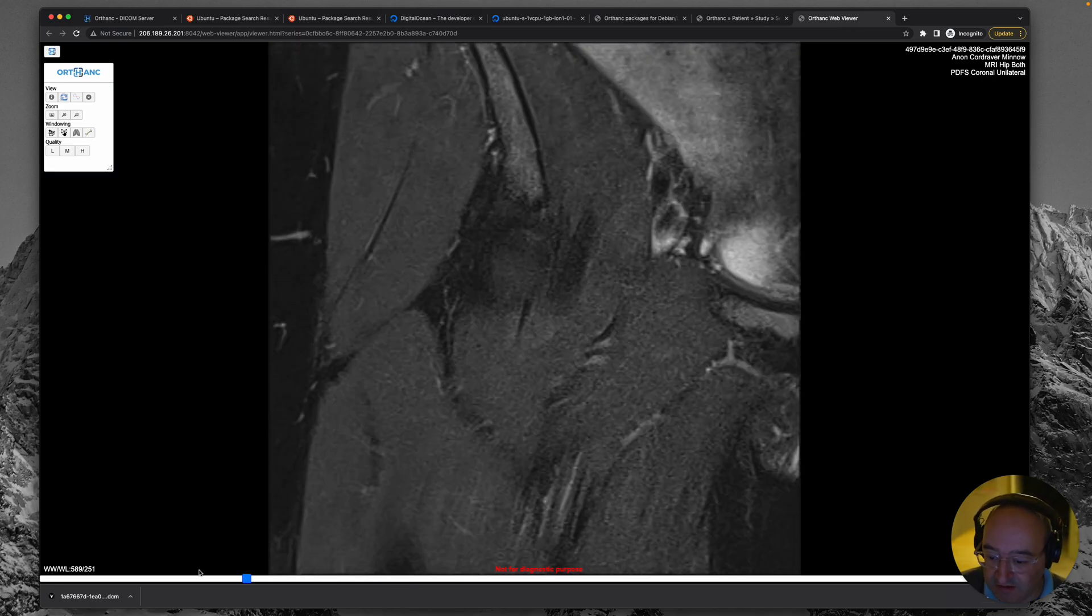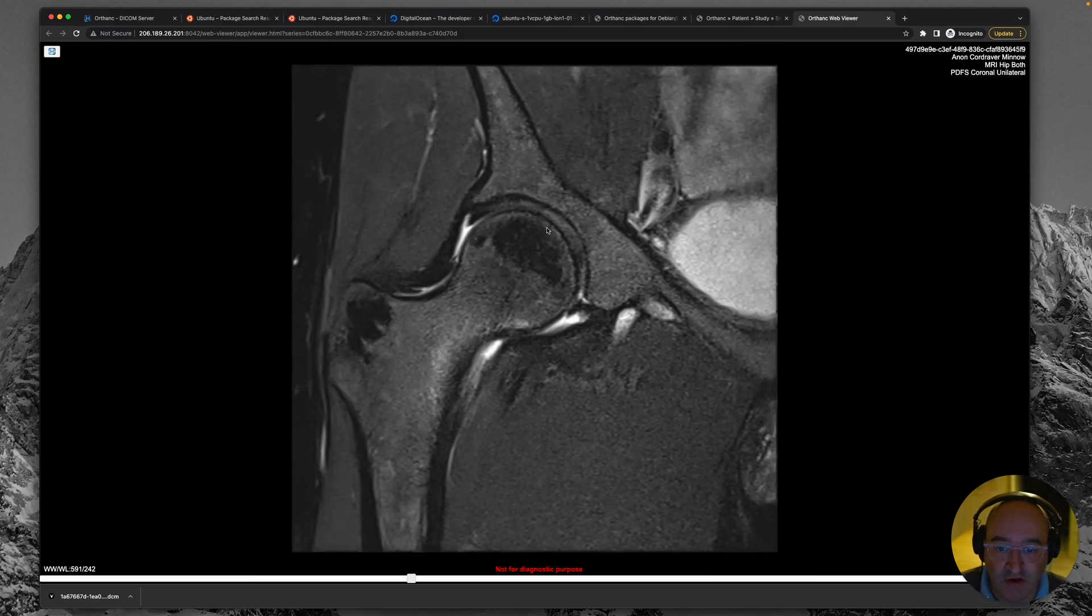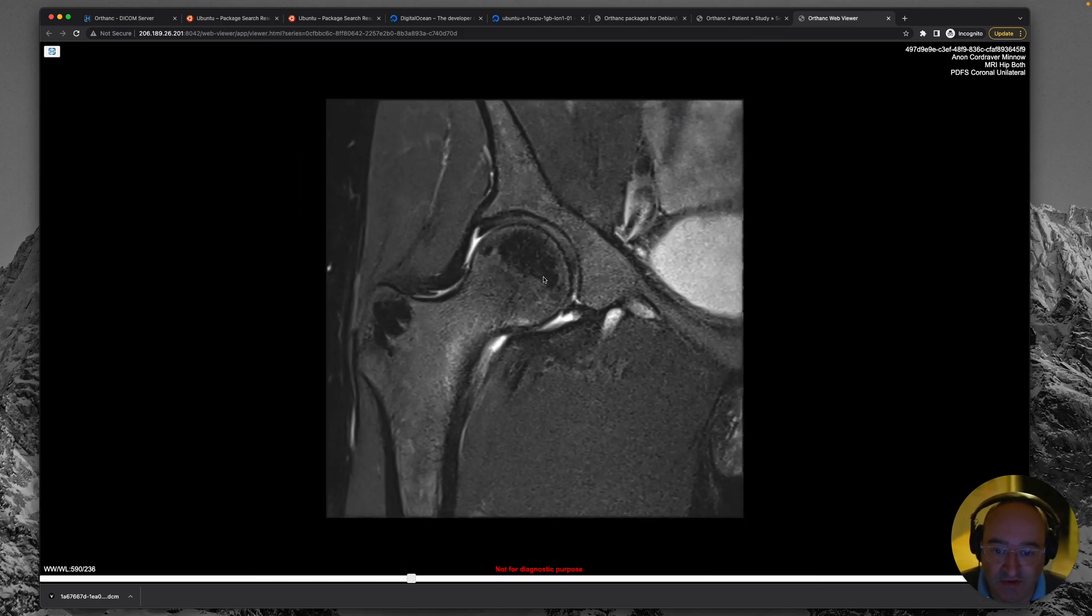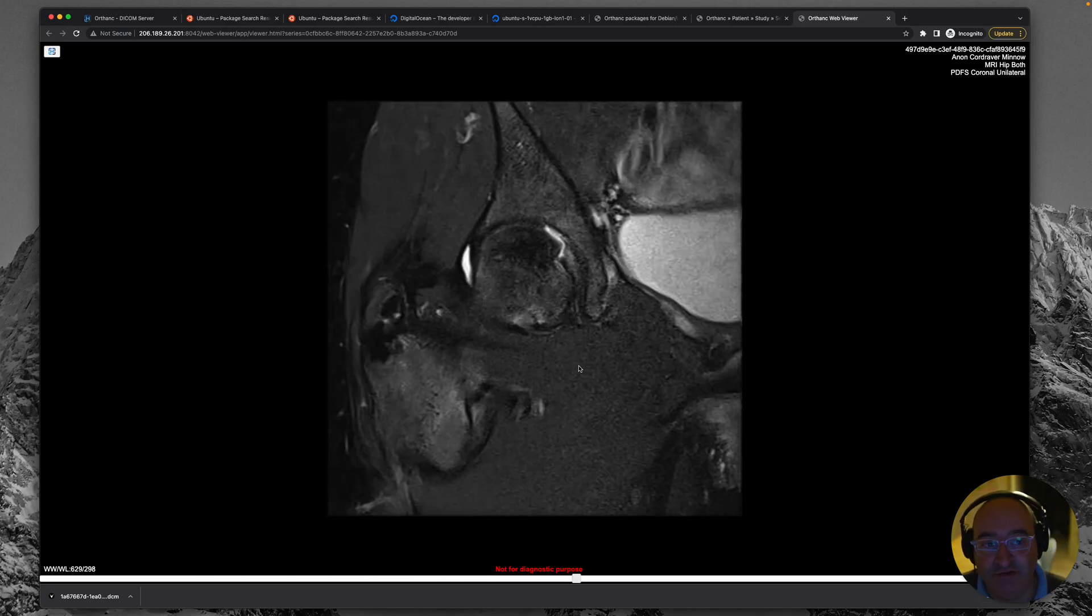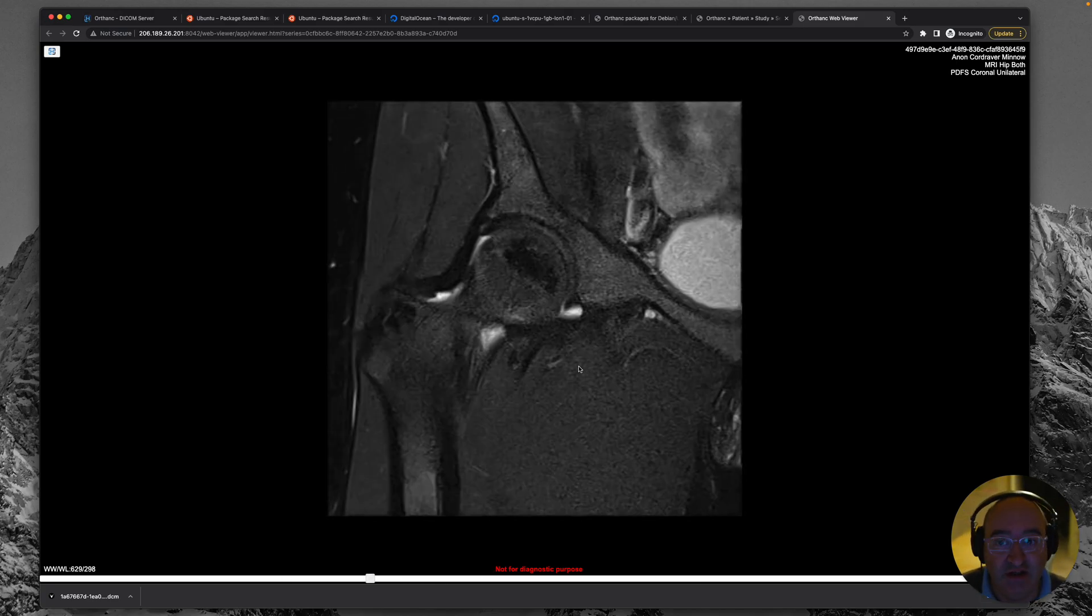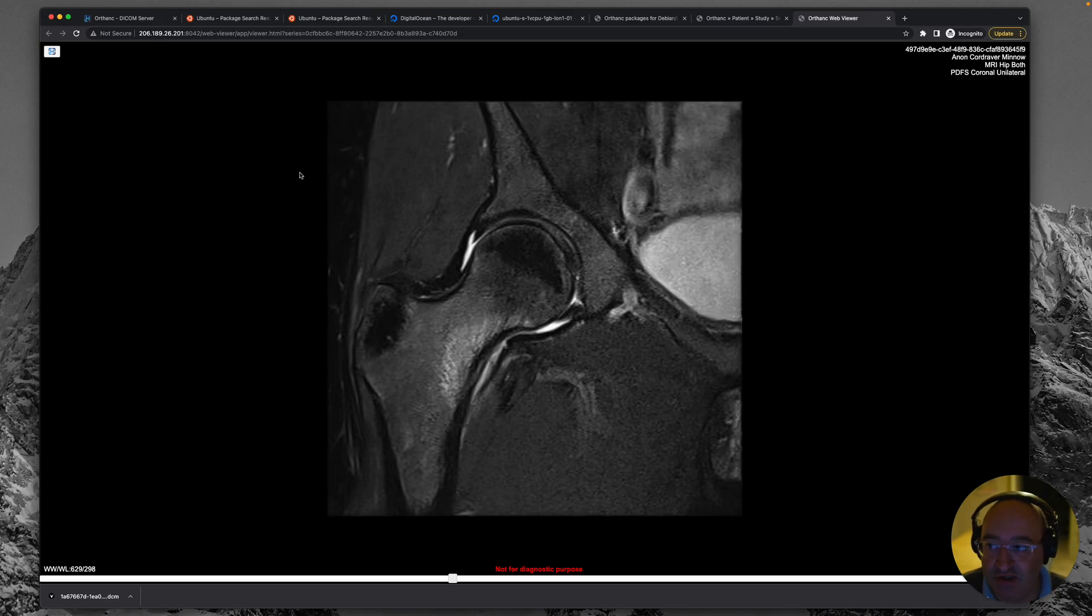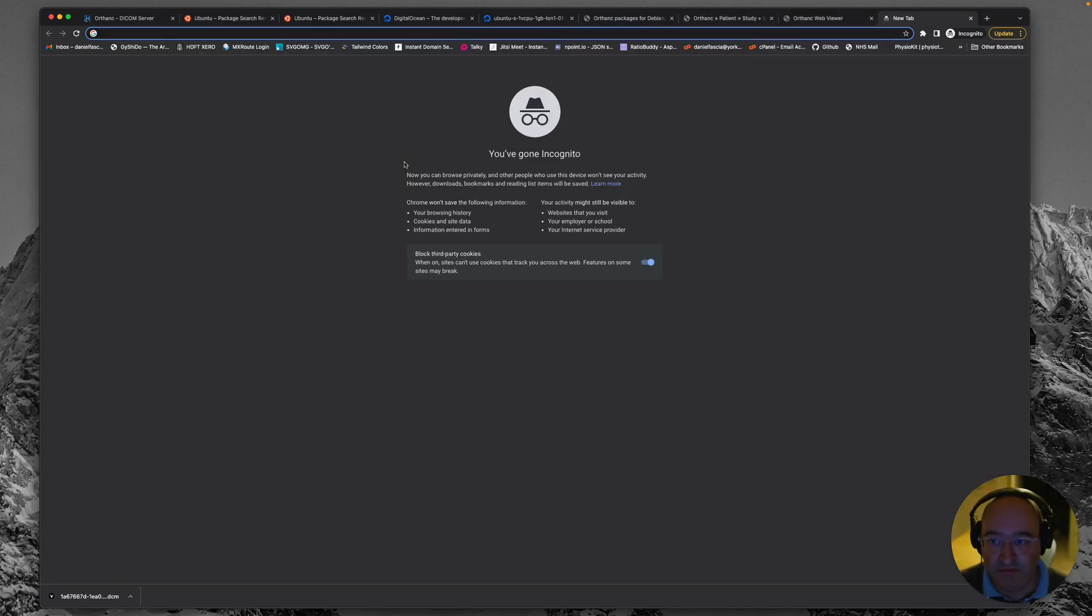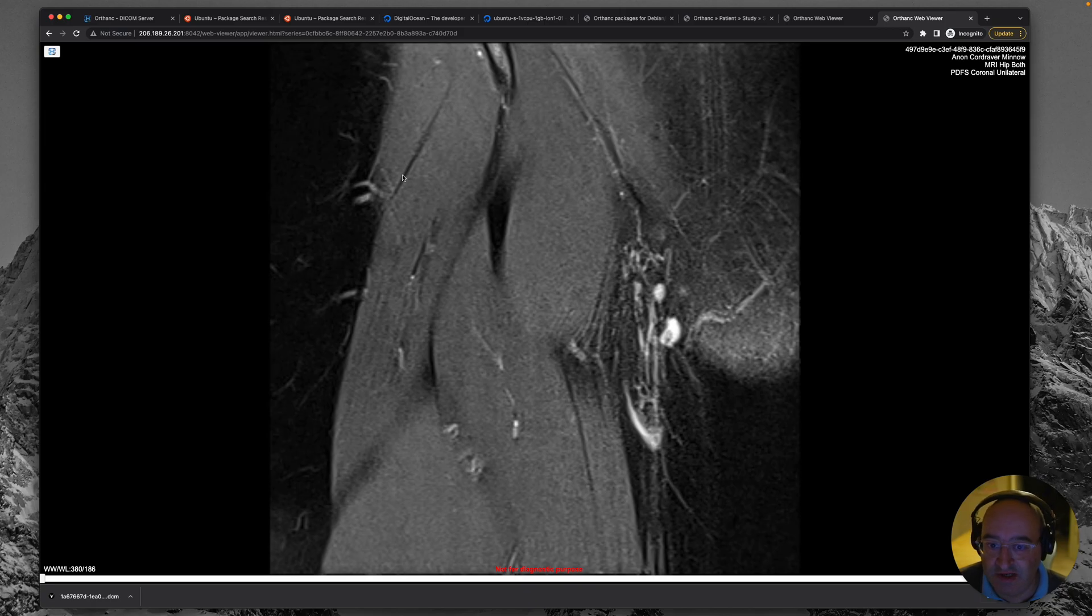I think that's about it. So we can drag this slider as well. I think, oh, double clicking and dragging is a zoom. So actually there's some really great commands straight off the mouse that you can use. I mean, right off the bat this would do fantastically for a little educational server where you could supply these direct URLs, I'm assuming, and be launched straight into the viewer. So let's open a new tab, put that URL in and it should take me straight to there.